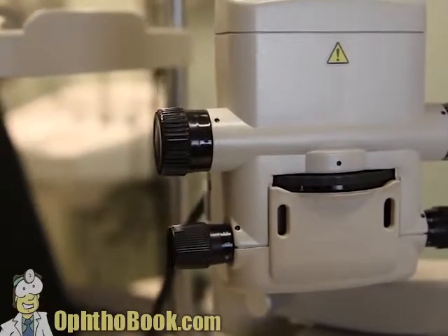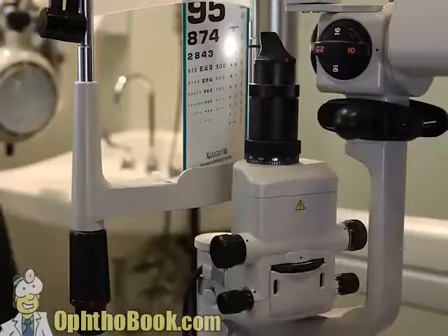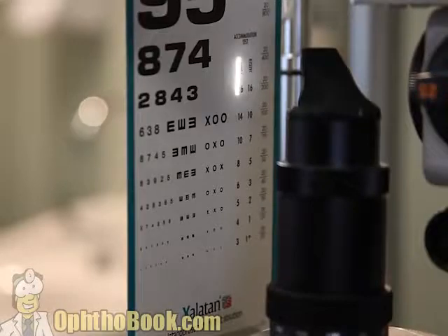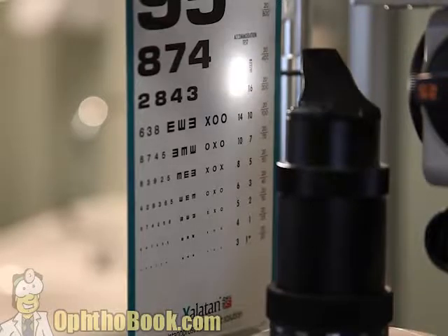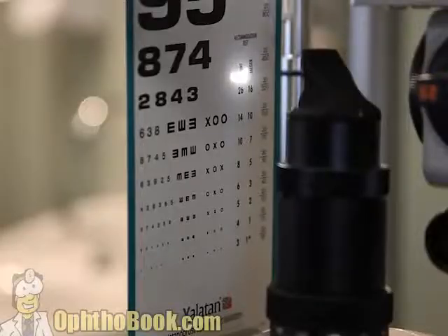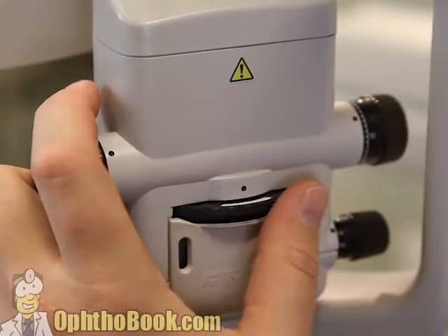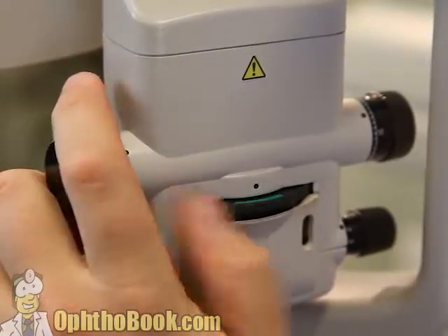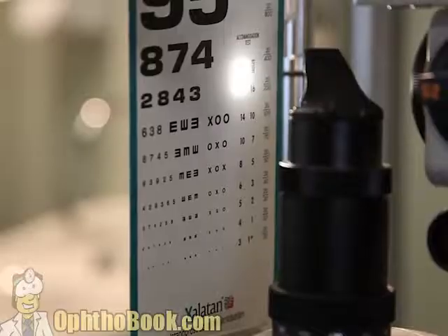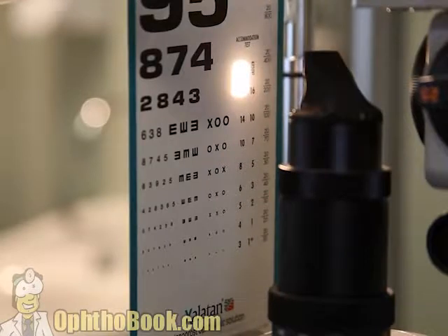We need to familiarize ourselves with the various knobs and dials. One knob controls the width of light, which is probably the most useful control on our entire assembly. Another controls the height — not nearly as useful, but very helpful when measuring the size of objects. And then we need to find our various filters, which we'll cycle through. We've got green, white, and of course the blue light, which we use most often.